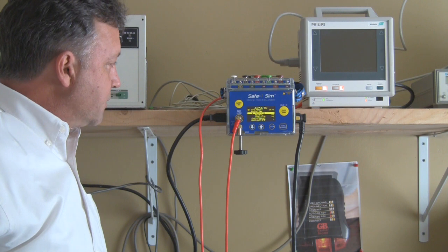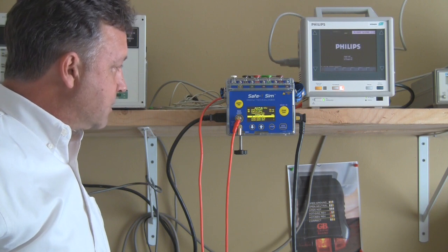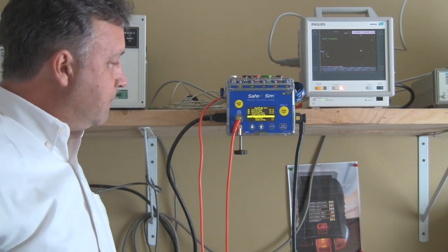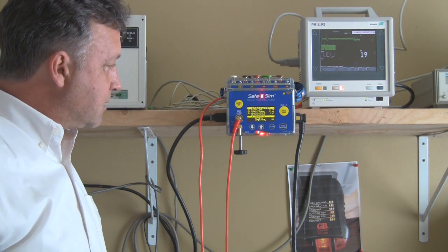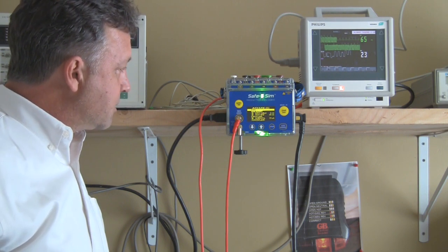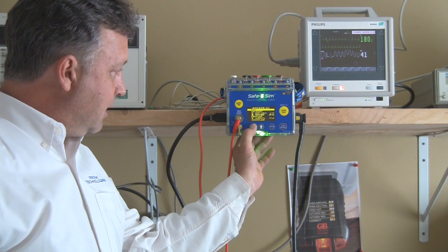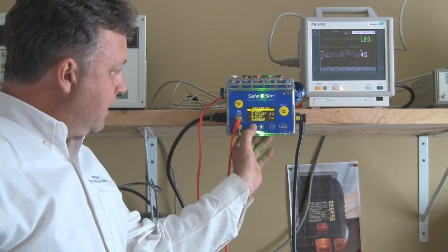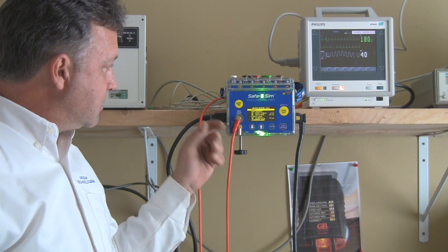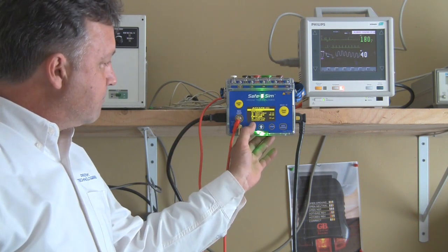Now it's got a good value and it's moving forward. This is the automated test I named ES2. It's moved on to earth leakage, now chassis leakage ground open, and it's giving us a green flash at both LED points for each test telling us it's passing. Quick red flashes tell us it's in ISO — it's doing the ISO test on the snaps and we're done. At the end you get a solid green LED both at top and bottom, telling us that every one of the tests passed and that we completed the testing.